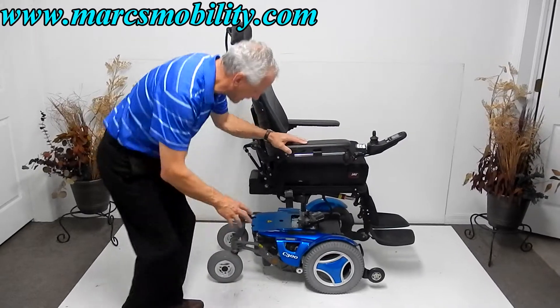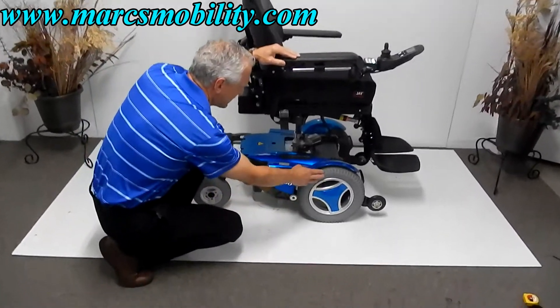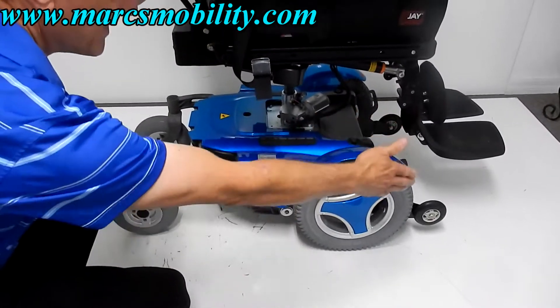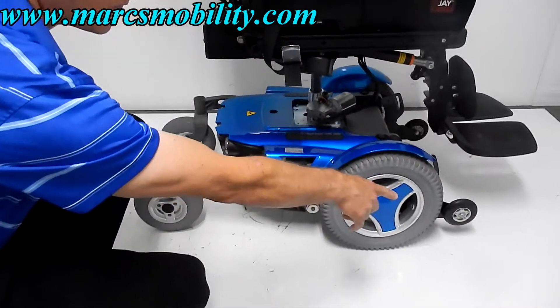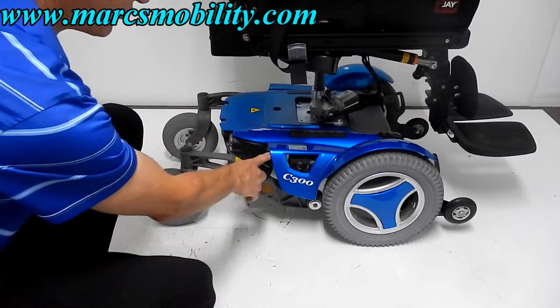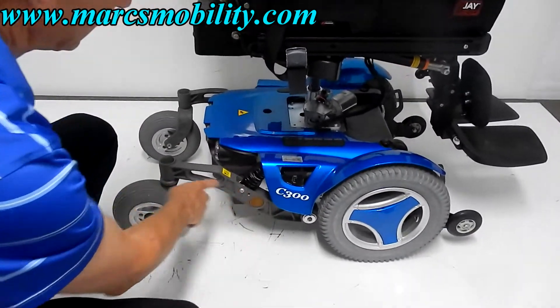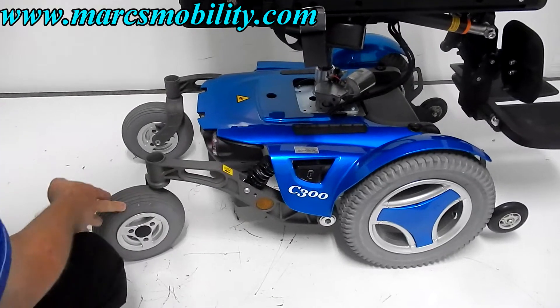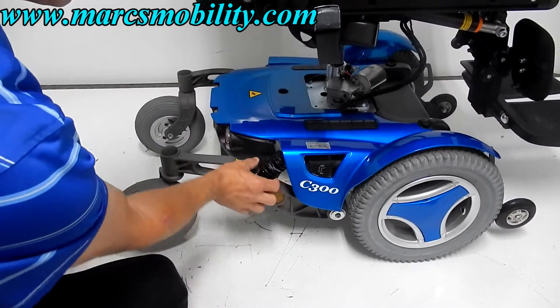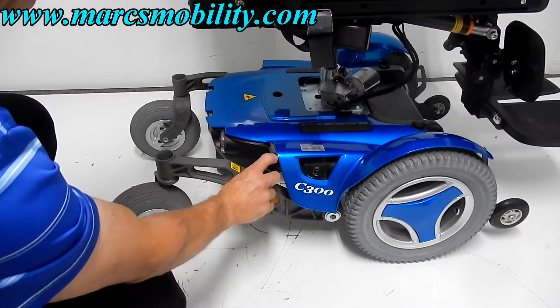This chair is very, very clean. We've got 14-inch solid tires. This is a front-wheel drive — there's nothing in front of the drive wheels except the tip wheels, which are not touching the ground. You've got the great Permobil suspension with the articulating back and castor wheels in the back, and the suspension can be adjusted by turning the knob at the bottom to make it tighter.